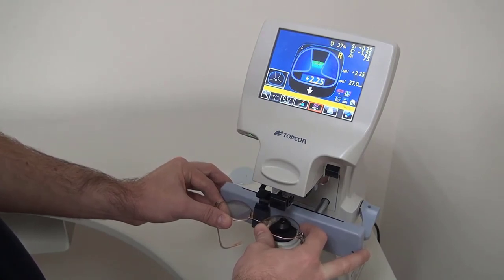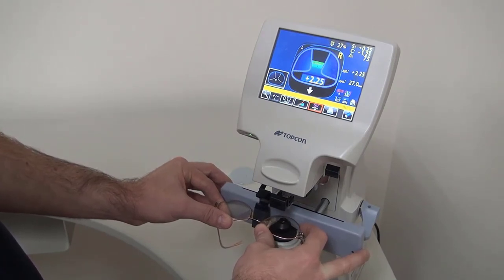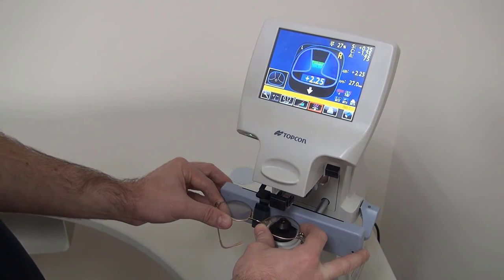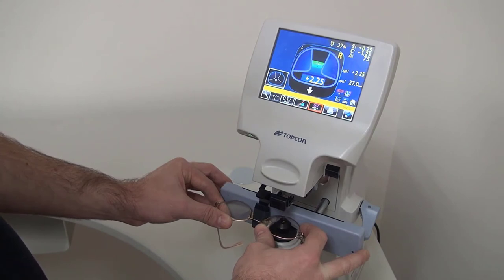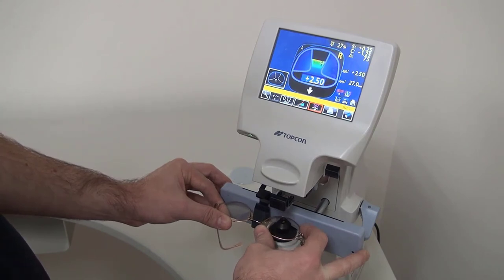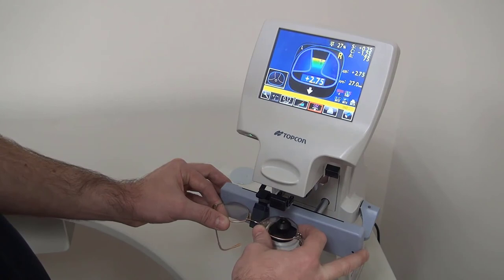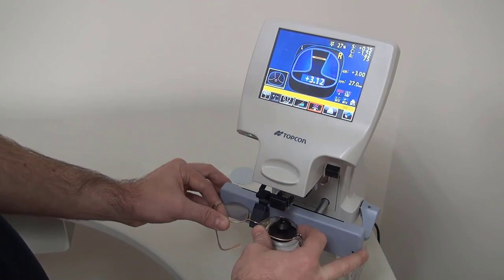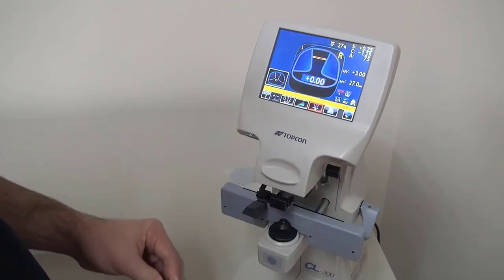And then when you get to the end, you can see that the cross — the right and left sides have elongated. And then it'll lock in place.